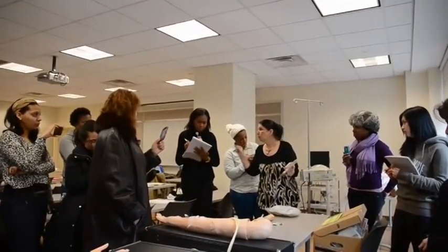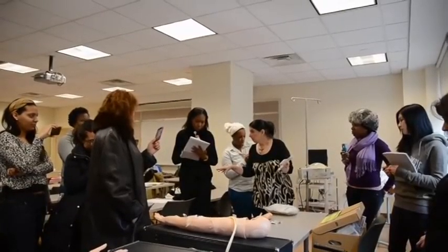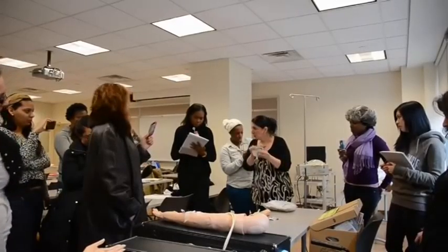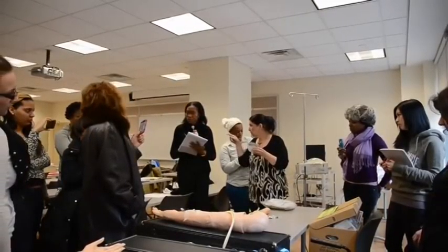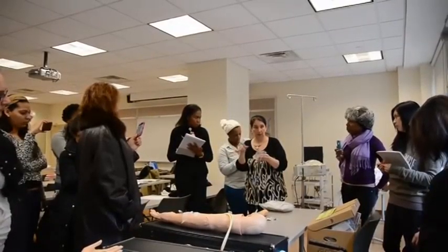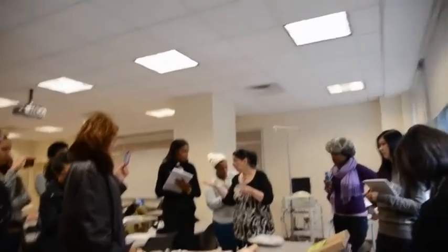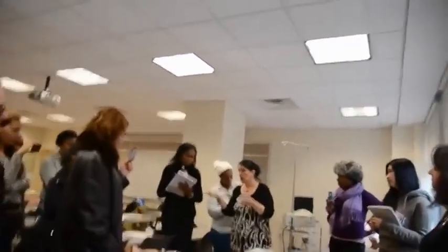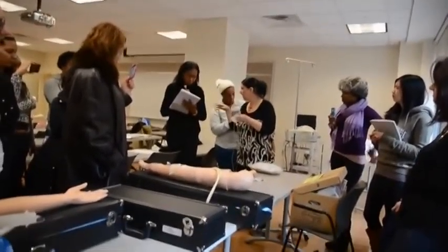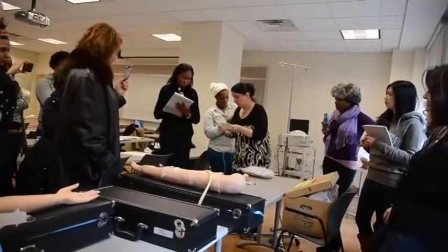The last thing we ask you to do is calculate the drip factor. We'll have calculators here, and we'll tell you how long we want this to run. I'm going to show you the quick way to do this. Some people like to do dimensional analysis — you could do that. I do it a fast way, and when you have 10 patients, you want to do it the quick way. I'll say, I want this to run over a half hour or an hour. But that's the last thing you do.